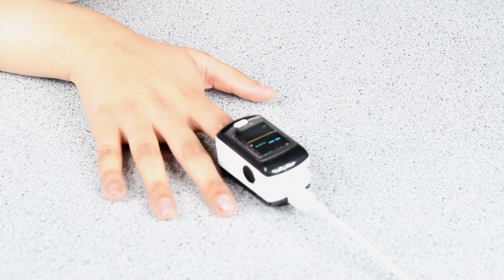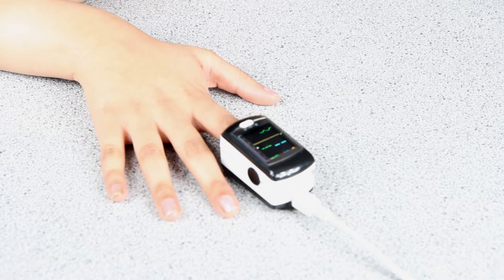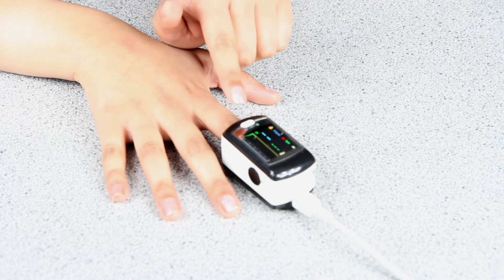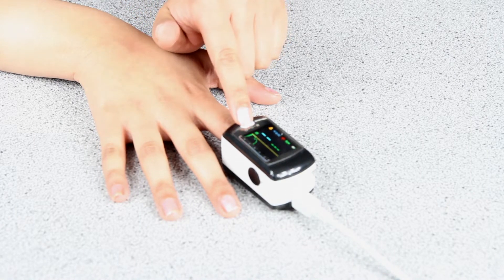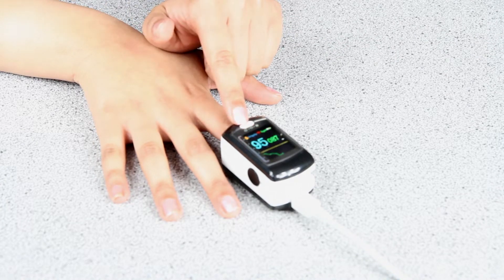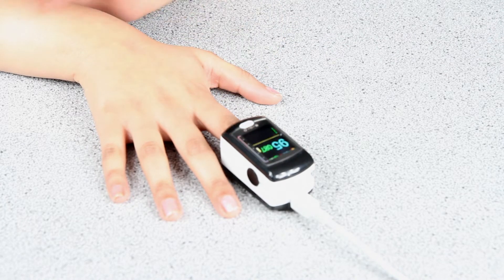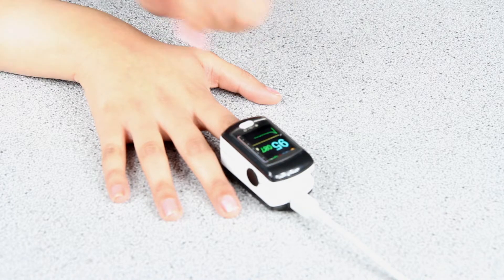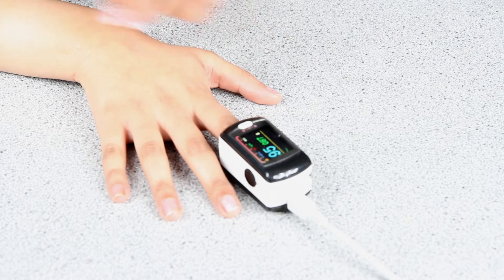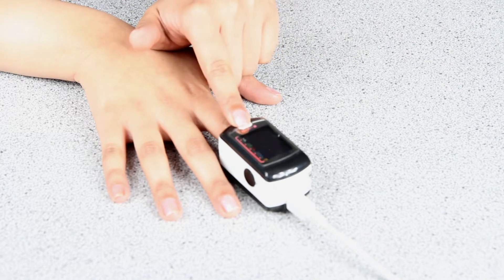Relax your hand and wait until your heartbeat becomes a clear and even trace on the device. The device measures your oxygen levels with two wavelengths of light and automatically adjusts the sensitivity for your finger until a good value is achieved. This can take about 30 seconds. Try to relax and keep your hand still to get an accurate reading.